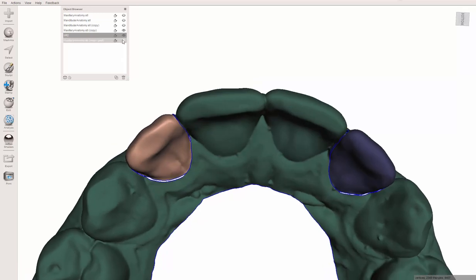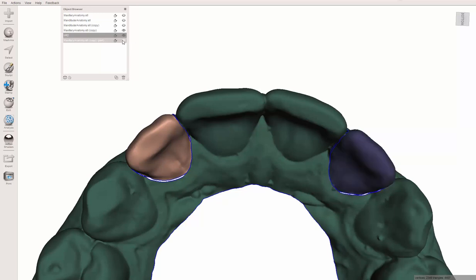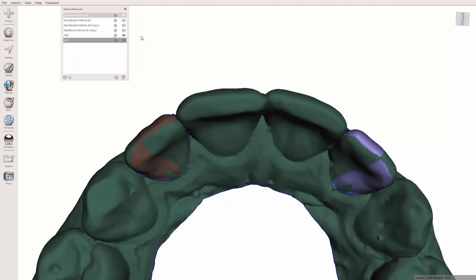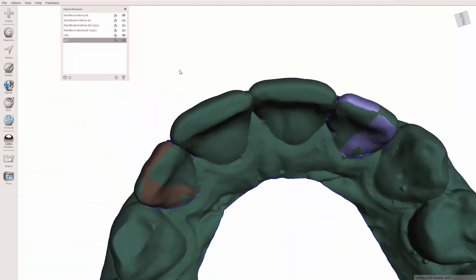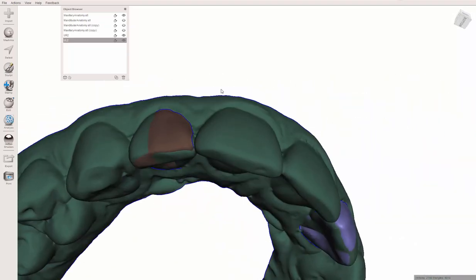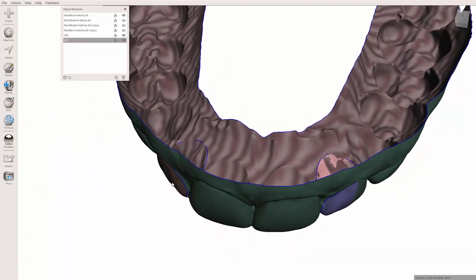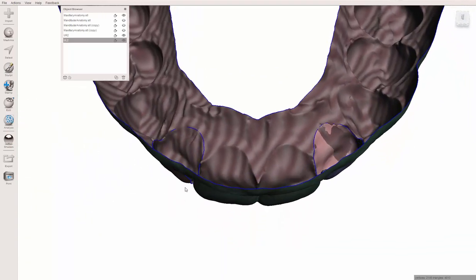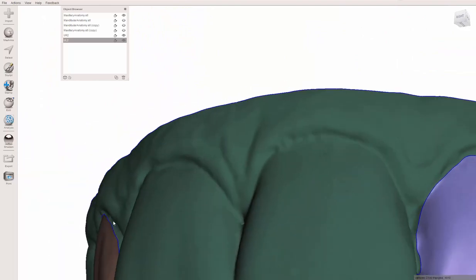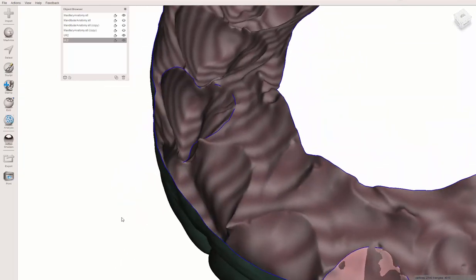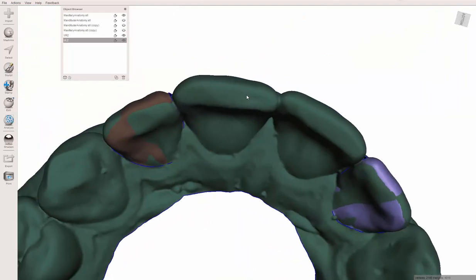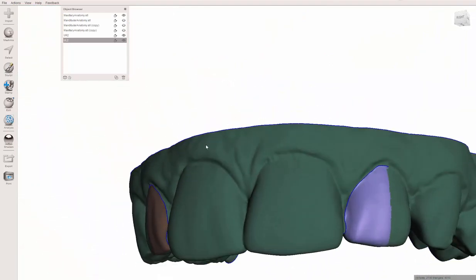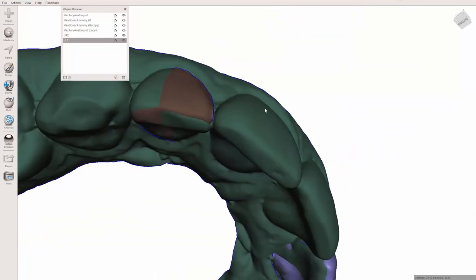The way I'm doing this, I'm expecting this to be one tray. That might be a situation where you might not want to do that, you might want to do multiple trays. But I'm pretty confident that we can do this in one tray, particularly since she's been there before not too long ago. But if you think it's going to take more than one tray, then this method is not going to be a good idea.